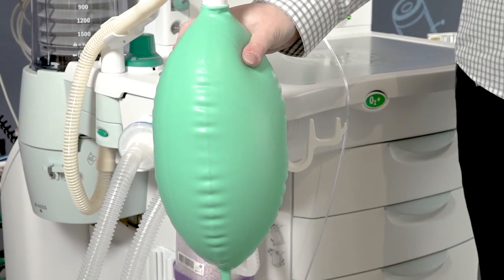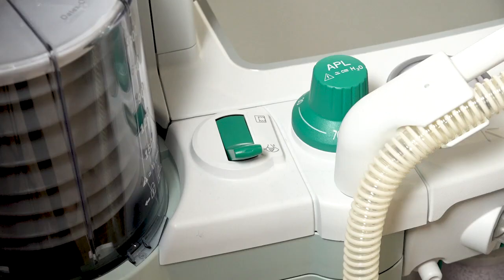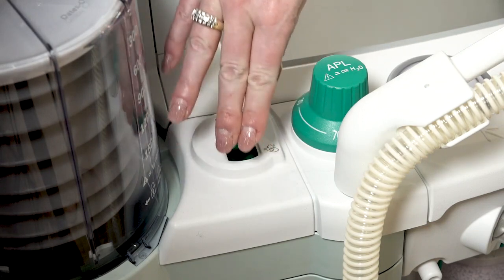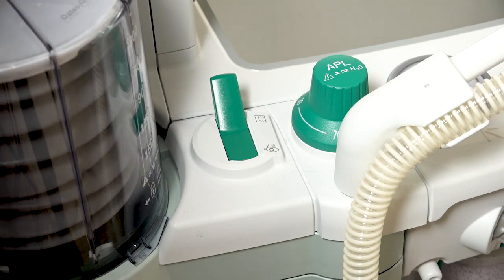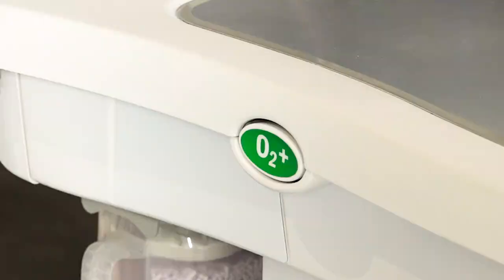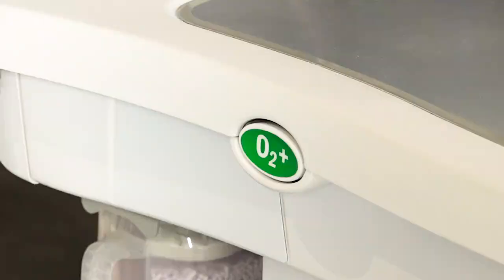If ventilating the patient manually, ensure the APL pressure limit is appropriate for the patient. Mechanical ventilation begins by moving the bag to vent switch to the vent position. Ventilation will begin at the previous configured or default settings. If needed, press the O2 flush button to inflate the bellows.